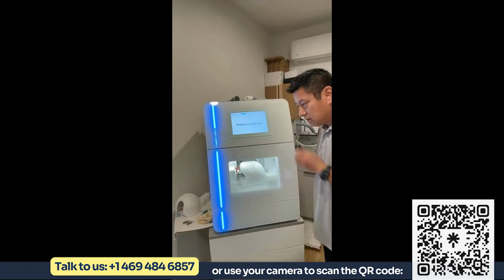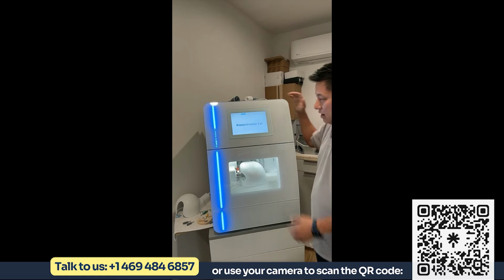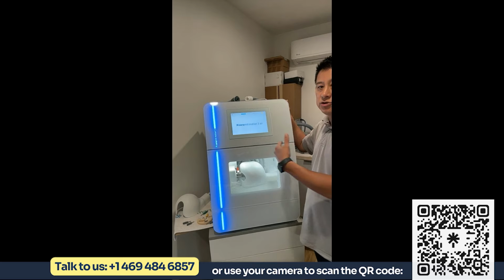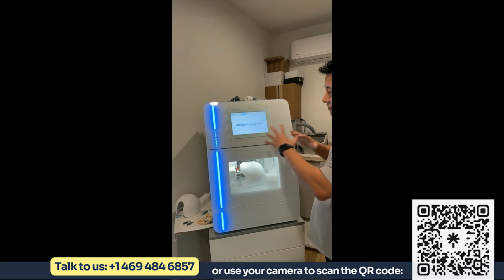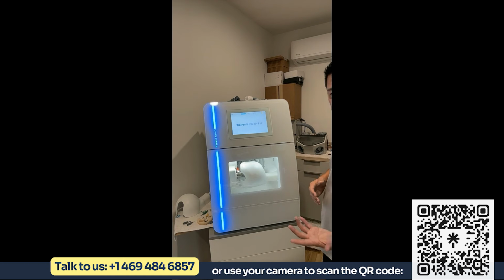This one's better? Okay. So this is the Motion 3 Air, the one that Enzo had on the package there. This is a wet dry 5-axis mill. The name Air means that this does not require an external air source. There's a compressor built into the mill already, which means you can plug it into the wall and start milling without any external air source or water source. So everything is self-contained other than the electricity. The best way to connect to your computer or laptop is through an Ethernet connection. That is the most stable and functions the best.